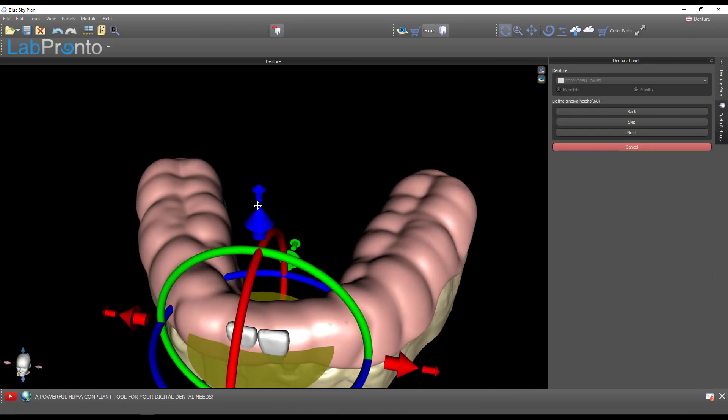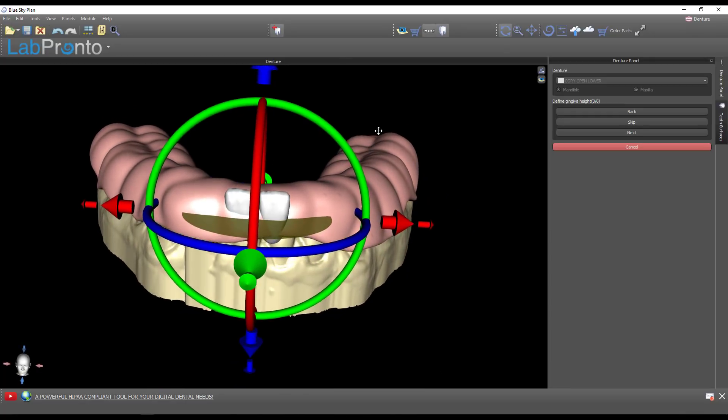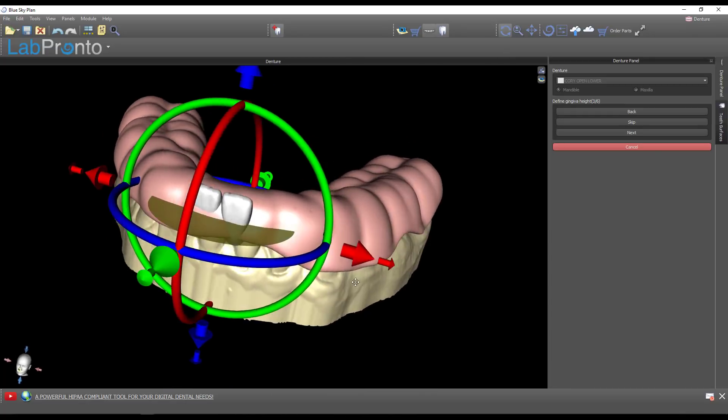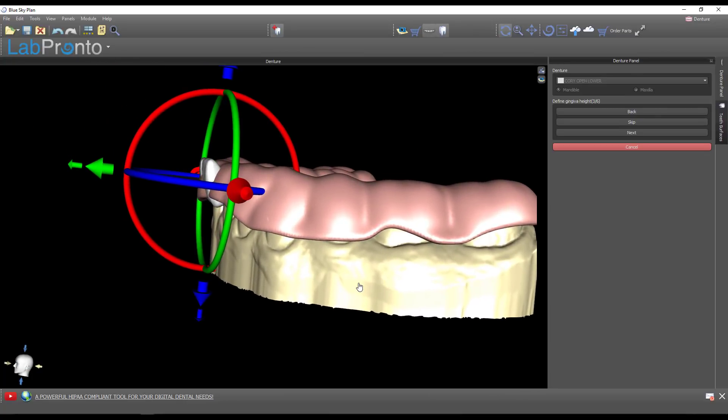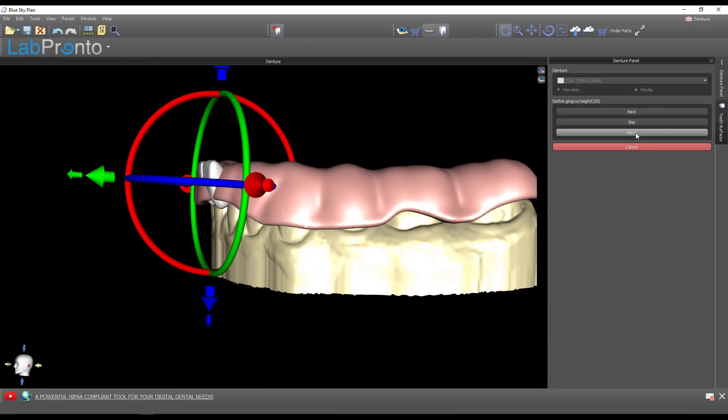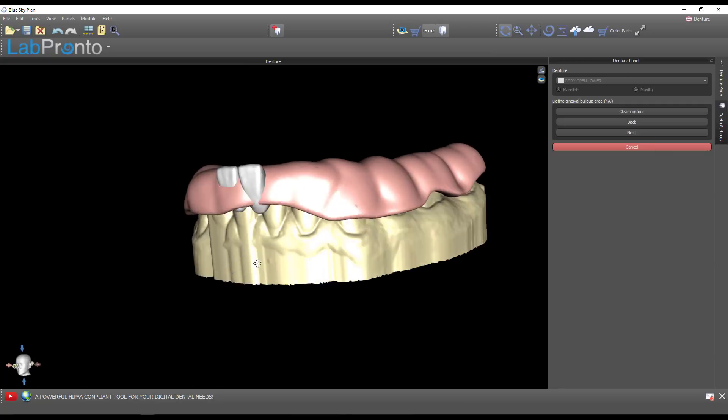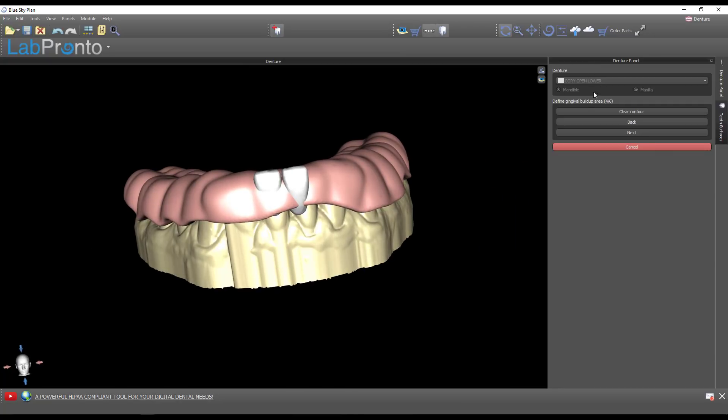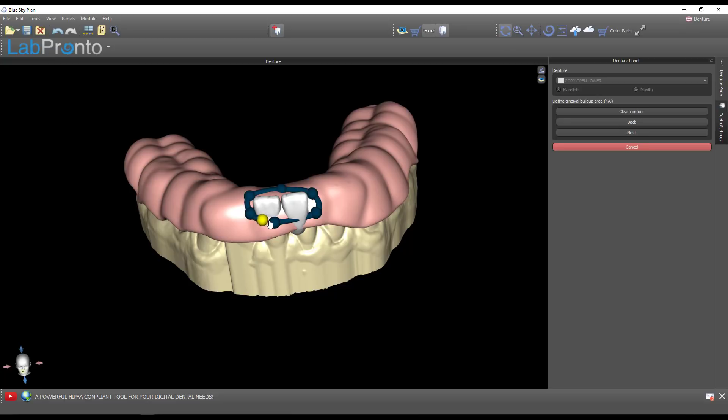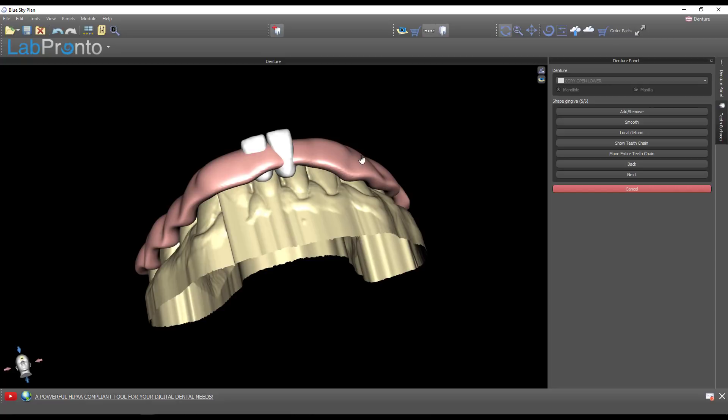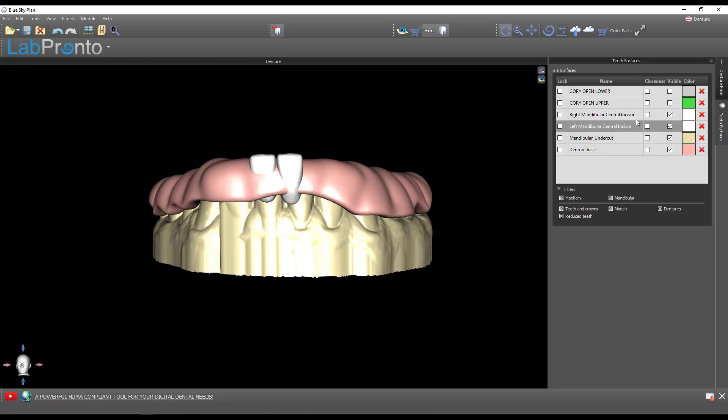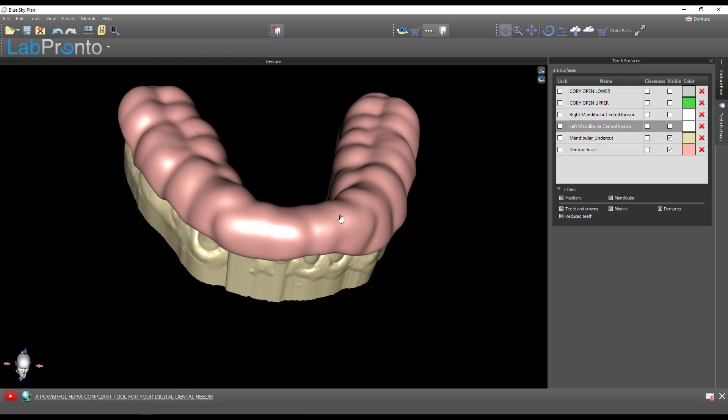I did an initial one at 0.3 and that seemed a little bit sloppy. This is a number you can dial in based on the fit and your printer. Go to next and now we have just a uniform three millimeter thickness base over the top of the teeth. The next two steps are built around denture making. Just click next at this step, then define the gingival buildup. Shift-click your way around, close the contour, click next.